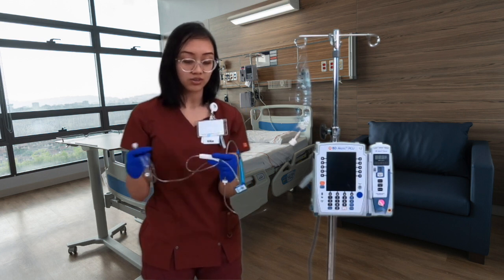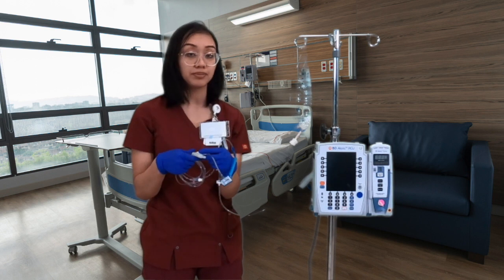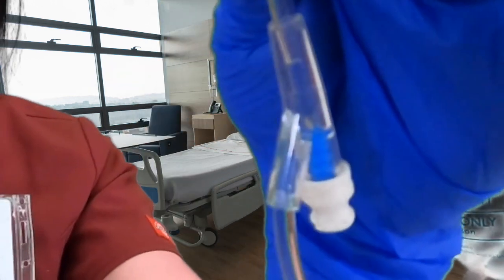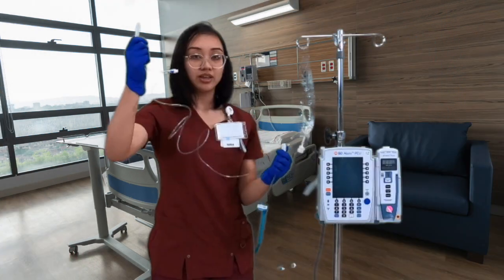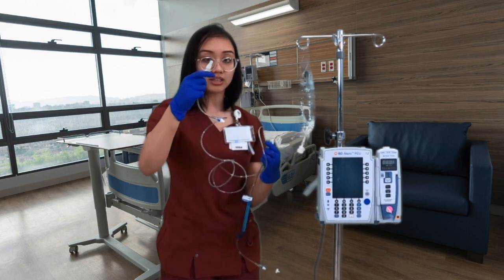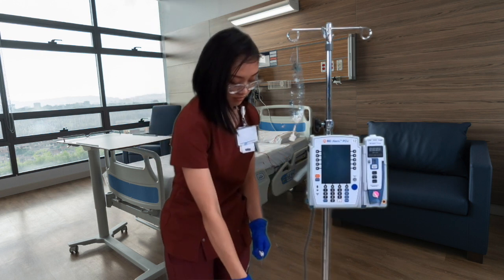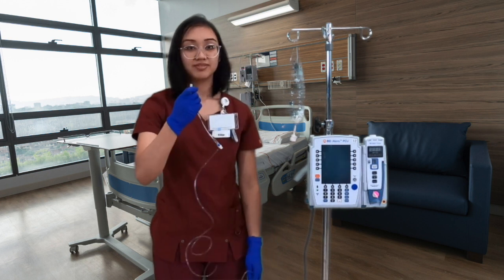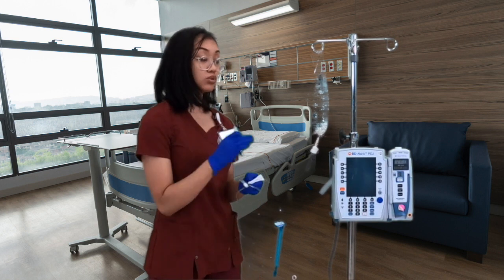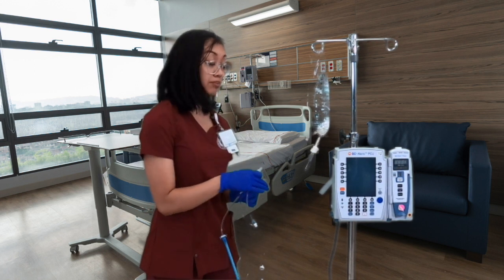As we slowly unclamp, once we get near the top part, I'm going to be near a trash can to let the excess fluid run out. The final step before connecting to the patient is to double-check our line — make sure everything is clear with no bubbles. We also want to make sure the fluid itself is clear and not cloudy.